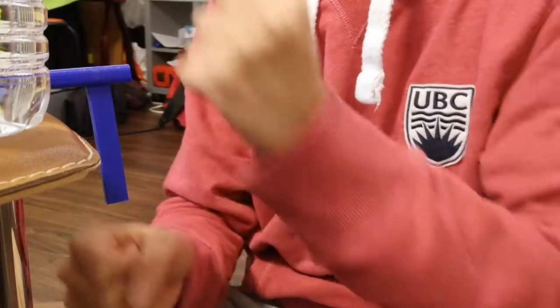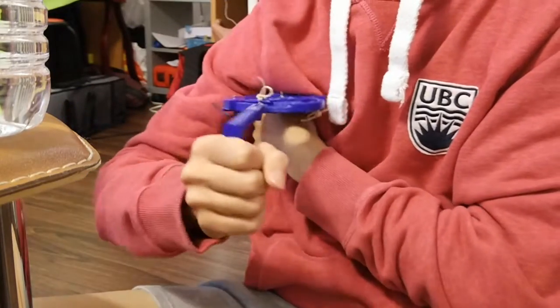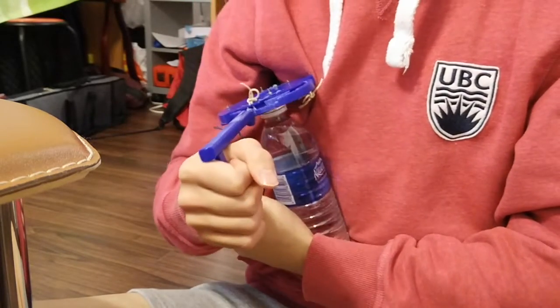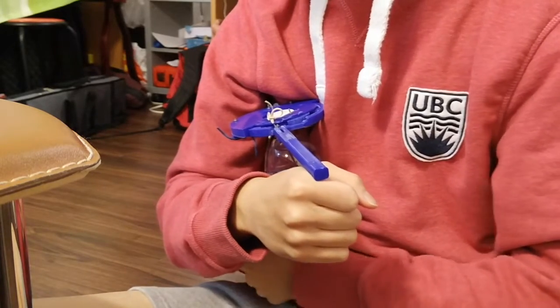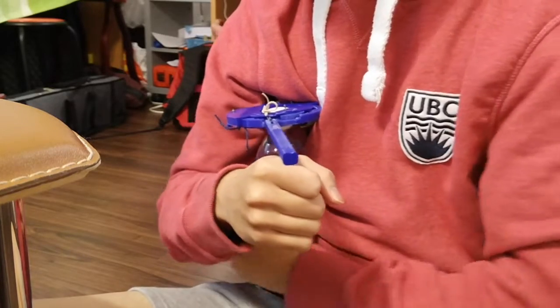To use the device, first obtain a grip onto the handle and place the other end under your armpit. Then, insert the bottle cap into the slot and clamp it shut by rotating your arm inwards. Using your other arm, rotate the bottle until the cap comes completely off.